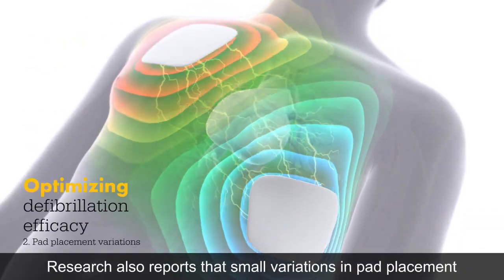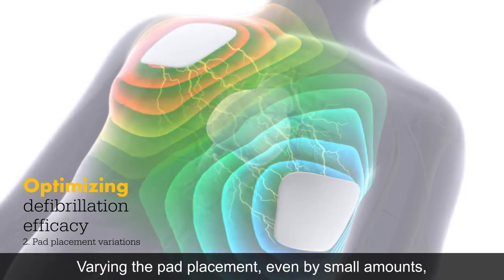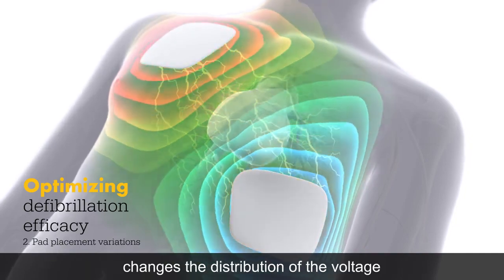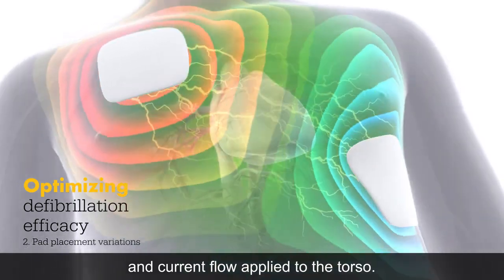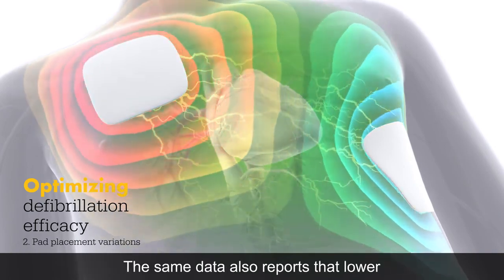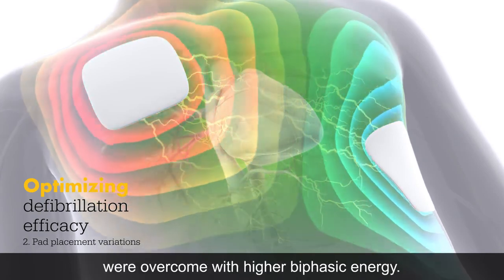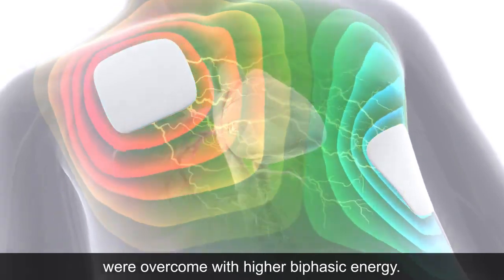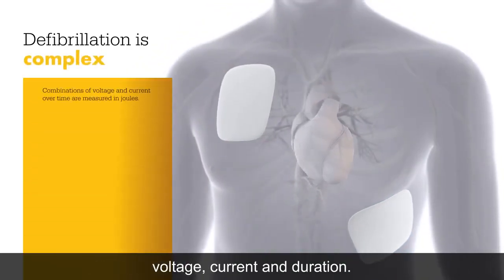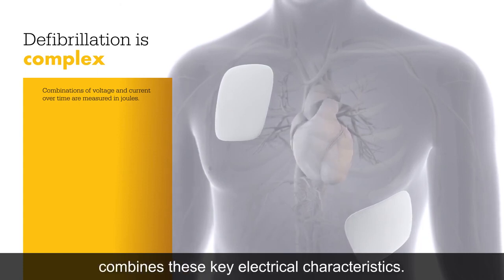Research also reports that small variations in pad placement can impact defibrillation success rate. Varying pad placement even by small amounts changes the distribution of voltage and current flow applied to the torso. Predicting the optimal pad placement can be difficult. However, lower defibrillation efficacy from pad placement variations can be overcome with higher biphasic energy. Defibrillation is a complex process that combines voltage, current, and duration — a defibrillation shock's energy in joules combines these key electrical characteristics.